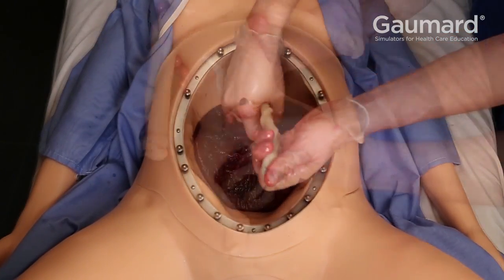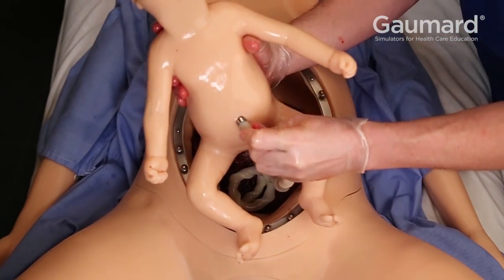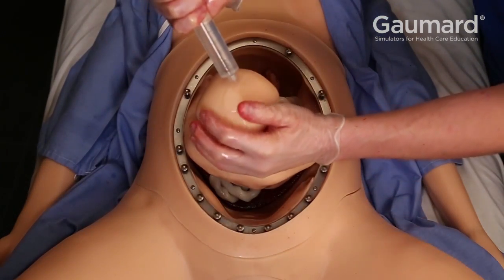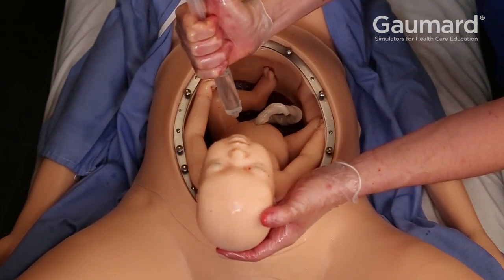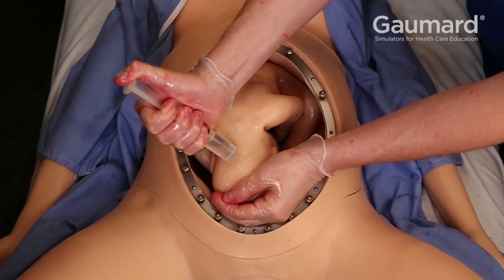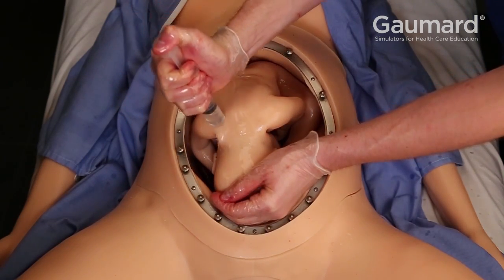Insert the umbilical cord to the navel of the c-section birthing baby. It attaches with a magnet. Ample lubrication is mandatory for accessible delivery. Use a syringe to apply at least 15 ml of mineral oil to the c-section birthing baby.